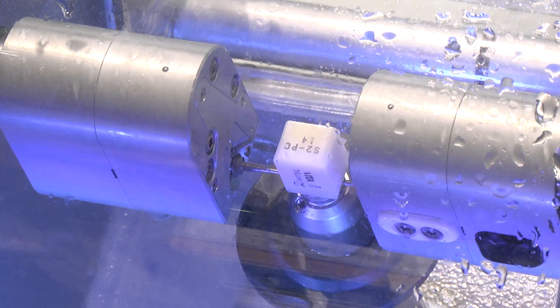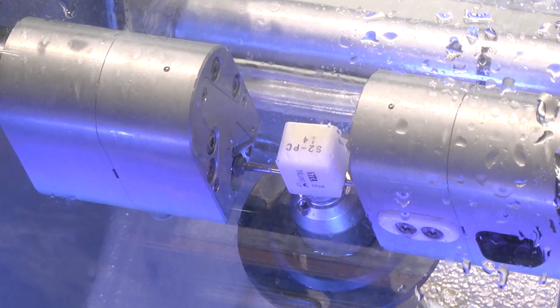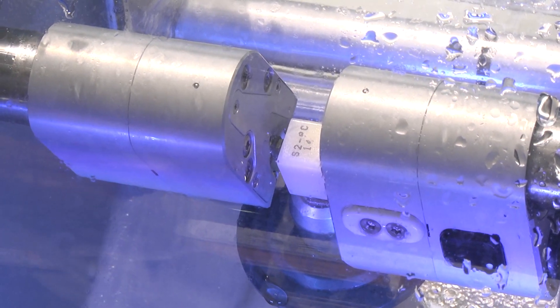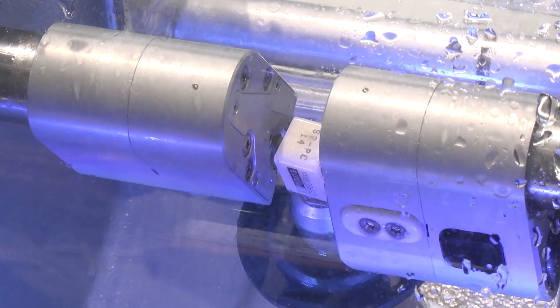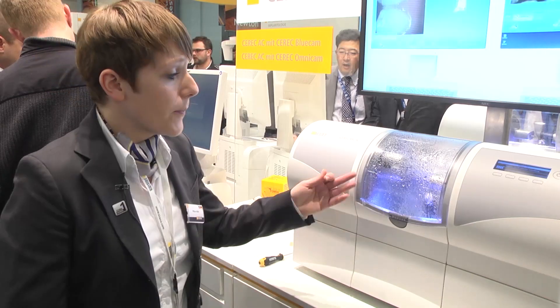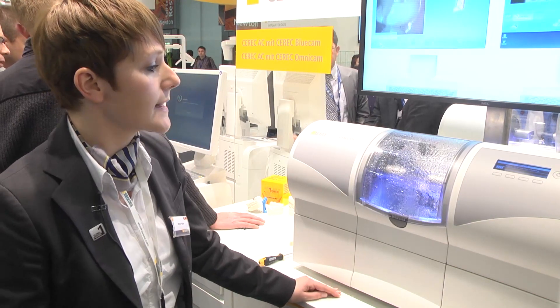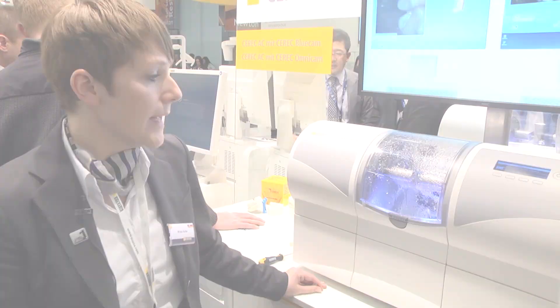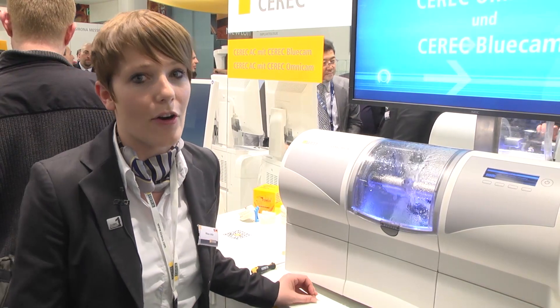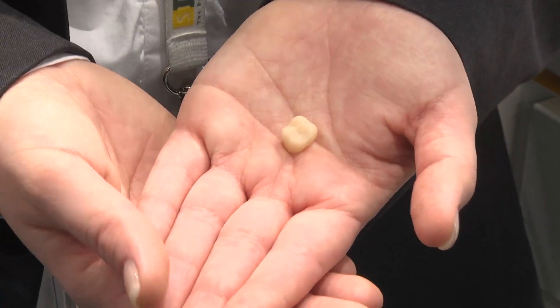At the beginning of the milling process, the burrs check whether the block is in the correct position and confirm that the right block has been inserted on the right side. Then the burrs begin milling the restoration — the crown in our case. The water is used to cool the burrs. The milling process takes about 10 minutes, give or take one minute depending on the material. After milling, you receive a finished crown and can decide whether to simply polish it with diamond paste or glaze it in a ceramic oven.